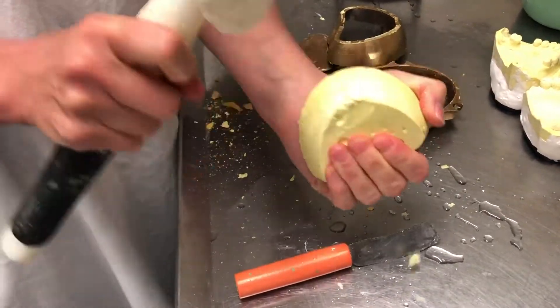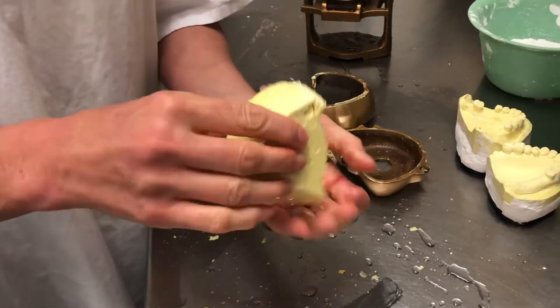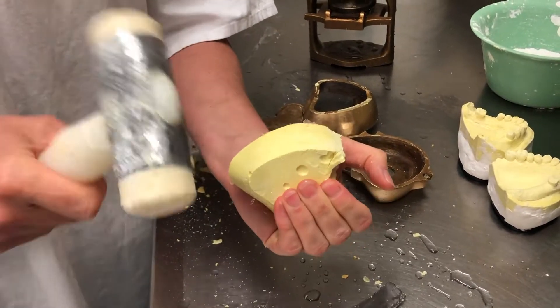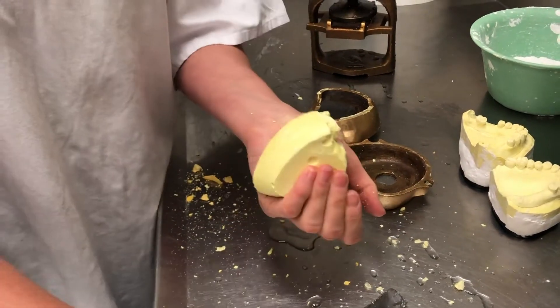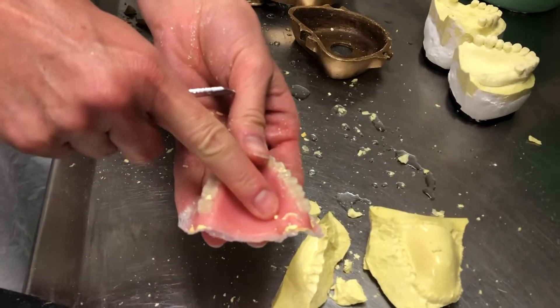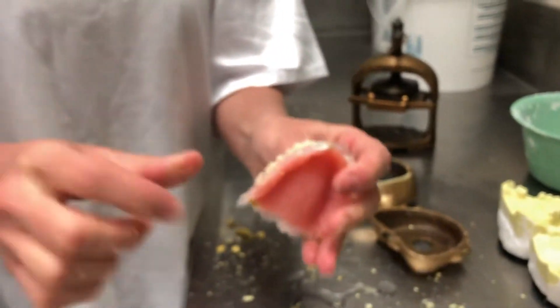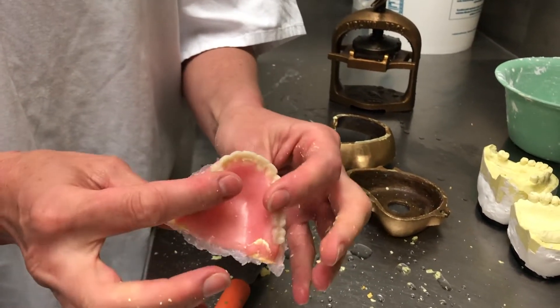So now this is all stone — this is where we get to destroy things. Remember our bubble? There's our bubble. See, nothing to worry about. We can just trim that off on the flat side. So then all we have to do now is trim all the edges with the burr, round them over, and then polish it.